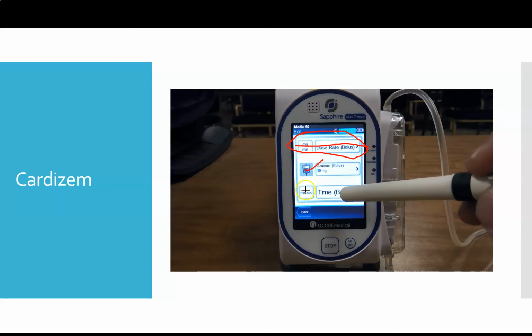So we're going to click time. We just want to enter in a time. We know we want 10 milligrams, give it over a certain amount of time. So our 2 out of 3 that we're going to enter here is going to be our bolus amount and the time of our bolus. We're going to let the pump do the math on its own to figure out the bolus rate.